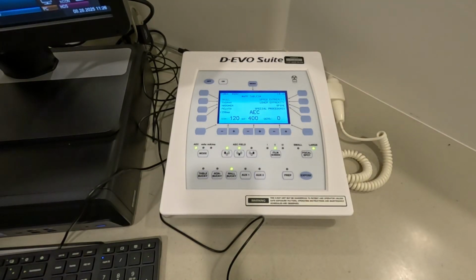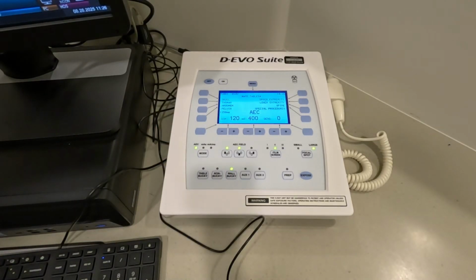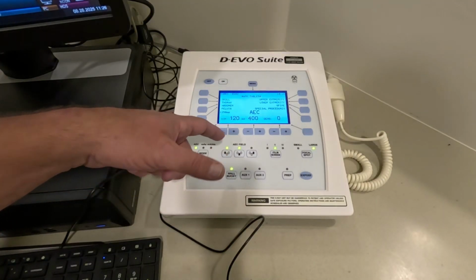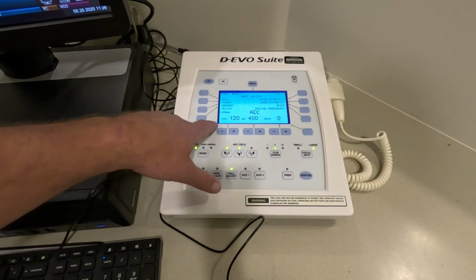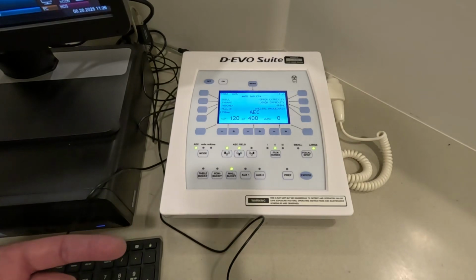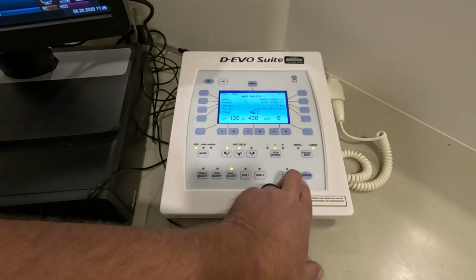It's really important to understand the control panel and what you're doing at the control panel, so that when the technologist you're working for says go set up for a chest x-ray, you know what that looks like. Most of the time your computer is going to control your control panel, but there are times that you can use the control panel itself to set those things up. You need to know the kVp levels for specific exams. For chest x-rays, it's always going to be about 110 to 120 kVp, depending on the protocol and machine you're shooting with. You need to know what the individual buttons are for.